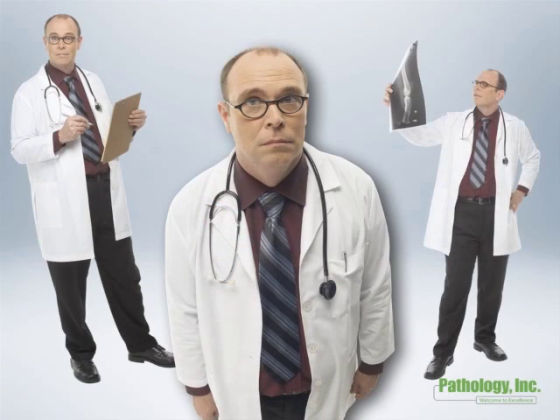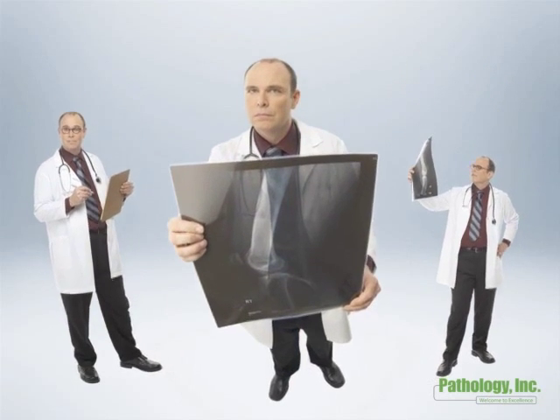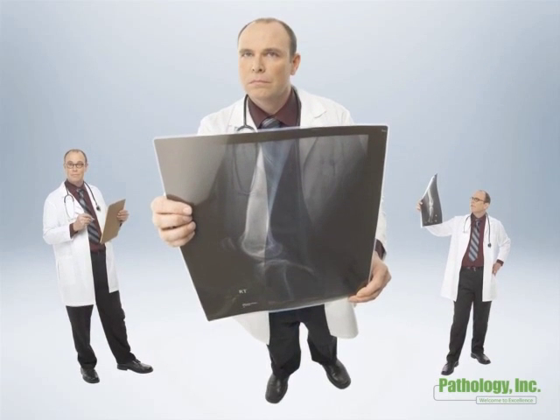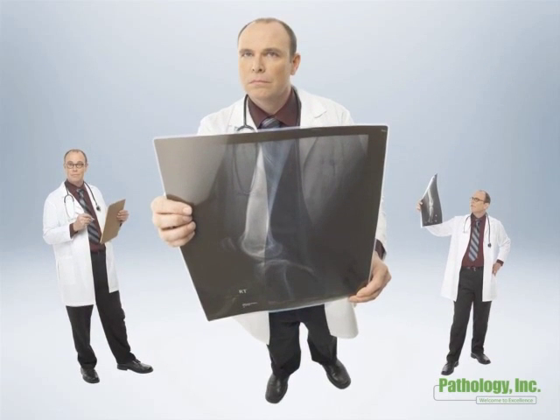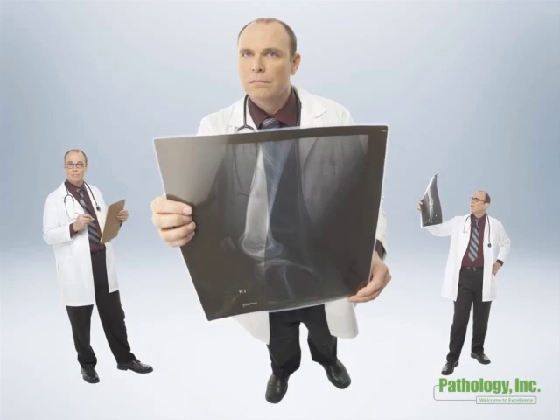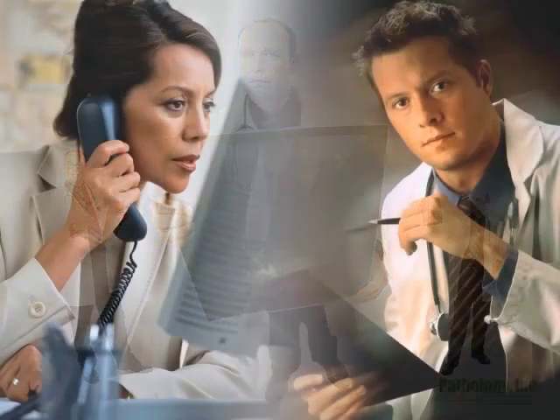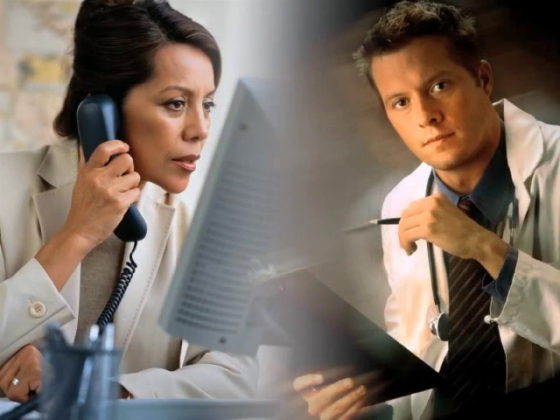As a physician, you appreciate the importance of consultations to help manage your busy practice and to provide your patients with the best outcomes. Some of these consultations may have involved radiology images viewed on a PACS system.